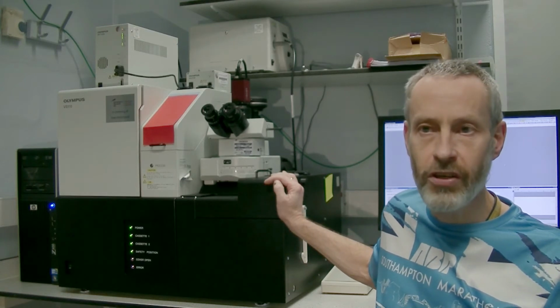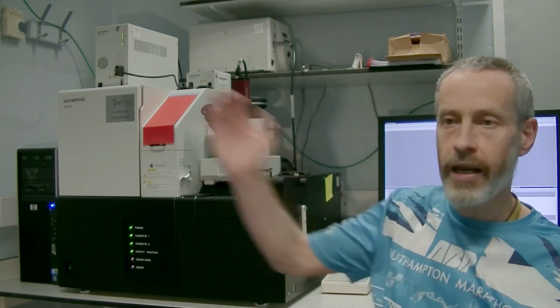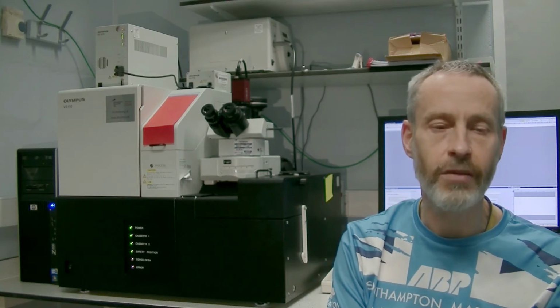The microscope works in the same way as the dot slide microscopes in our outer room, which David will tell you about, but it has extra bells and whistles. Firstly, it can automatically scan up to 100 slides in one go. And secondly, it can work with fluorescently labelled slides.